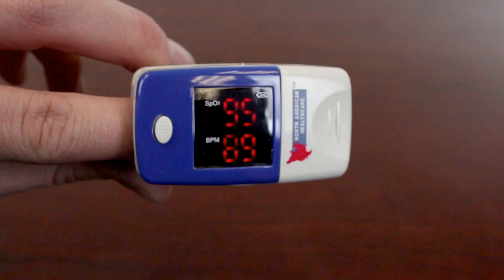As soon as I was handed this little guy I took it to the gym with me, because I wanted to test my heart rate before and after I worked out, and it worked really, really well. It was a lot of fun to play with — I passed it around to other people at the gym and everybody loved using it.